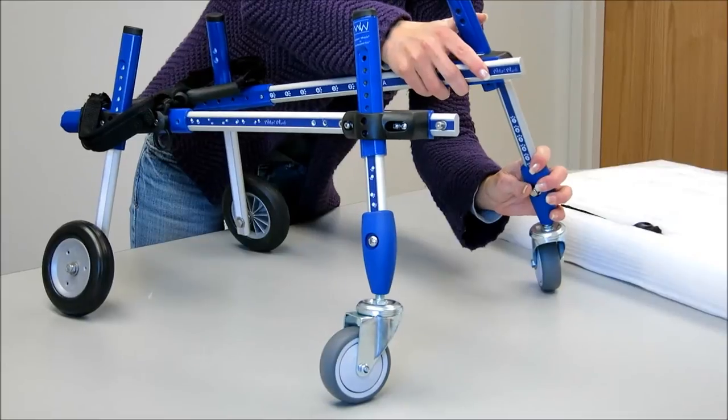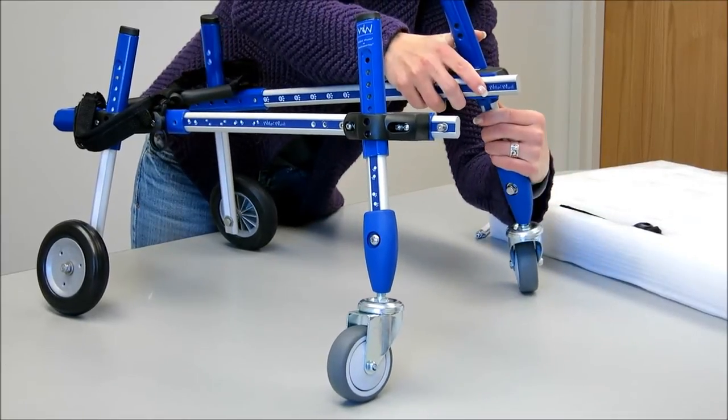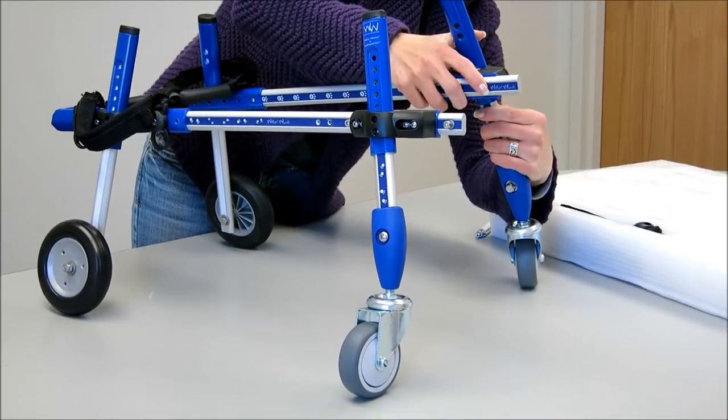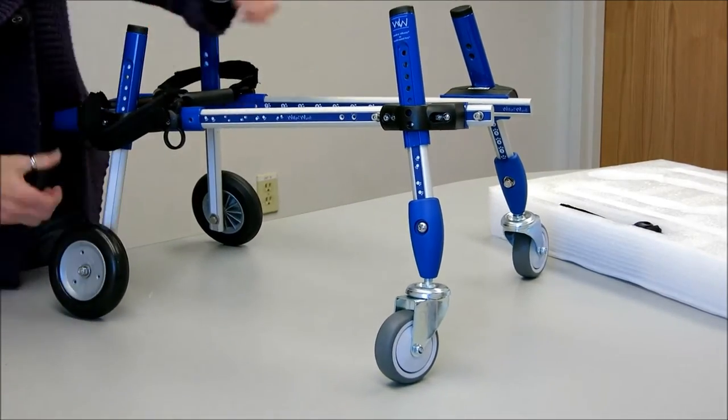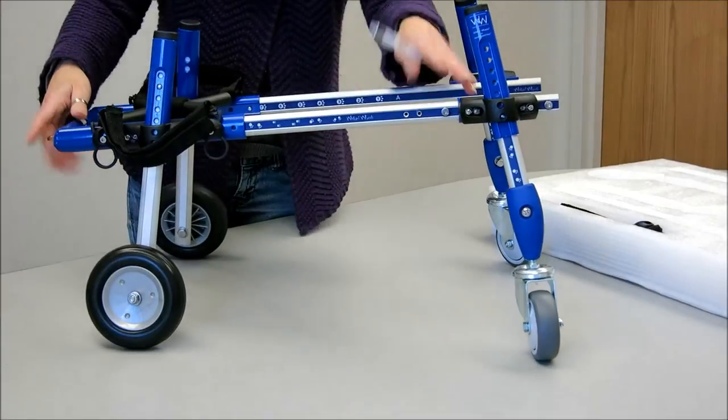Same on the other side, and then from here you make the adjustments so that the cart is level.